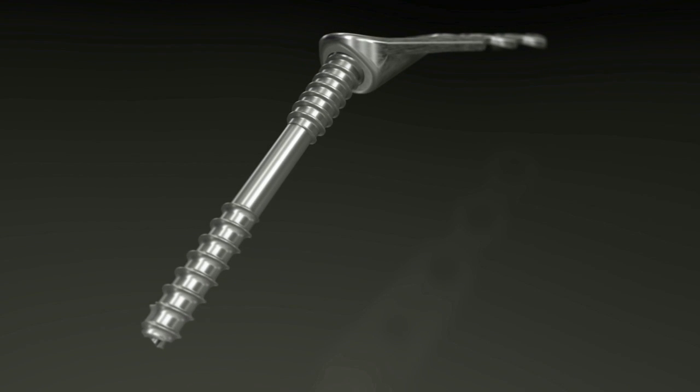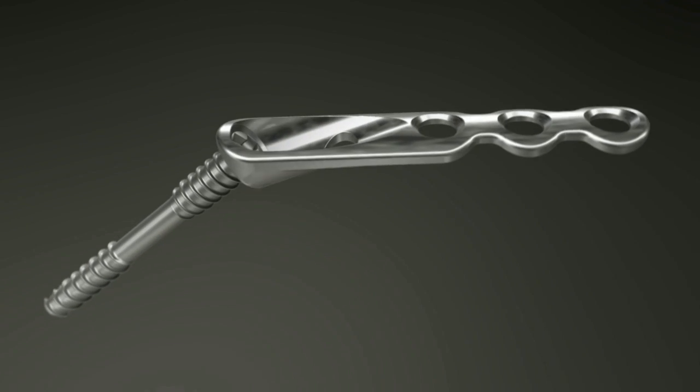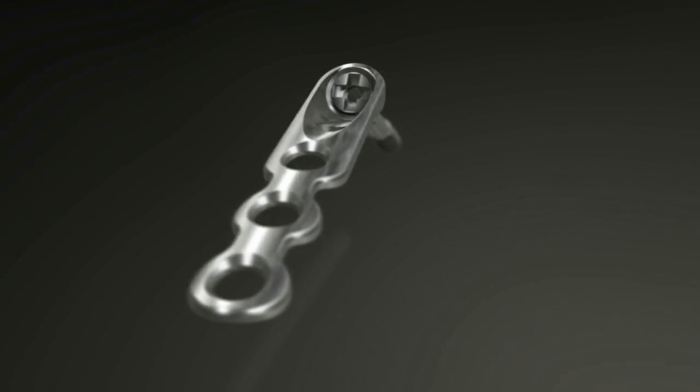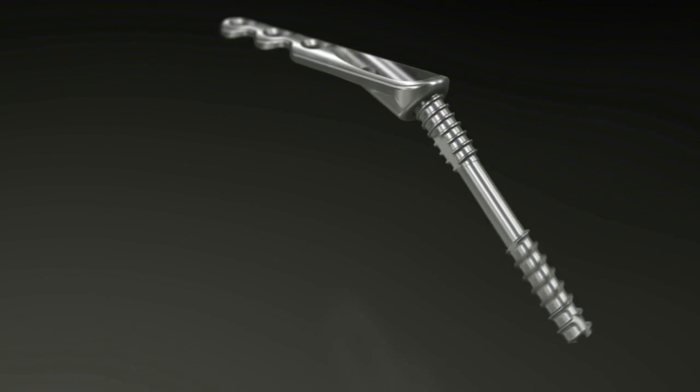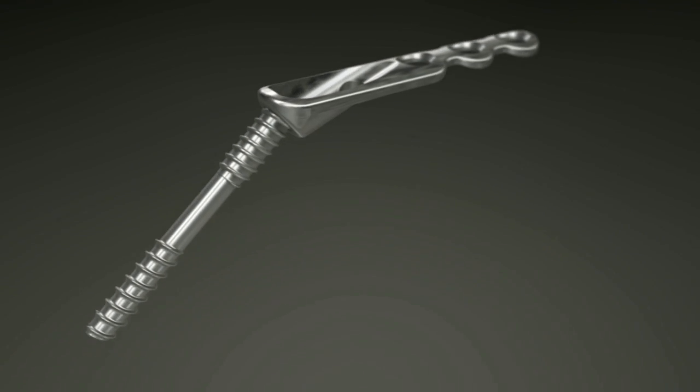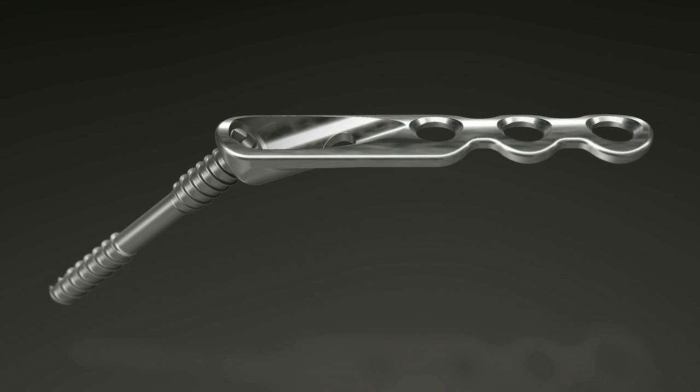Osteomed's hand plating system provides everything needed to treat the personality of the fracture. For those patients requiring arthrodesis, the unique angle of the hand fusion plates provides the added ability to resume normal daily activity. Still, one system, endless possibilities.